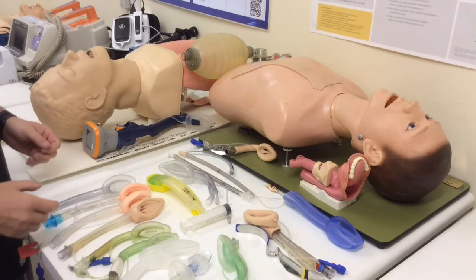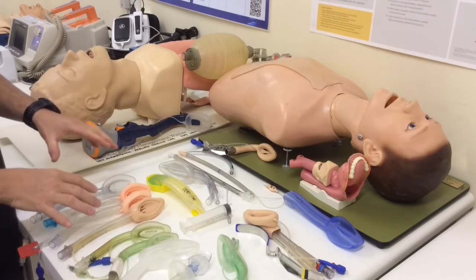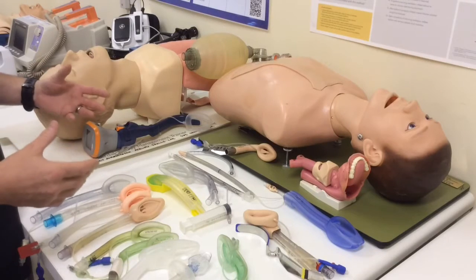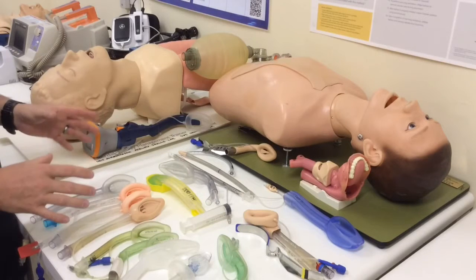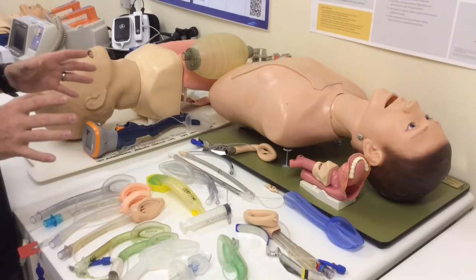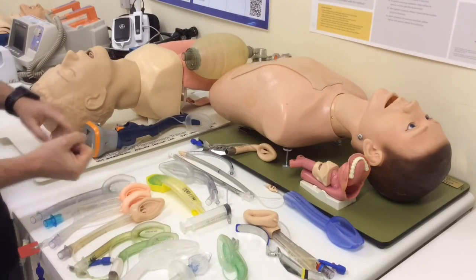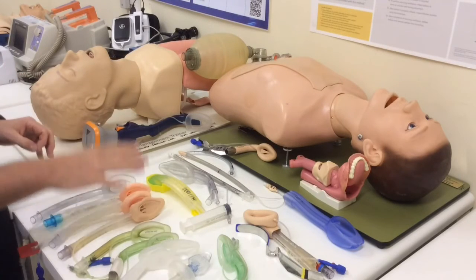So I'm thinking of the asthmatic, the COAD, the patient with airway burns, or the morbidly obese patient, where I'm going to need high ventilatory pressures in order to ventilate them, and these devices don't provide as good a sealing pressure as, for instance, an endotracheal tube where you can seal with 50, 60, 70 centimeters of water. These devices typically will start to leak at 20, 30, maybe 40 centimeters of water if you're lucky. So we must be aware of trying to ventilate patients where I anticipate high pressures, because these devices probably won't seal well enough. So restricted mouth opening, obstructions, deformities, and stiff lungs, situations where it might not be a great device.